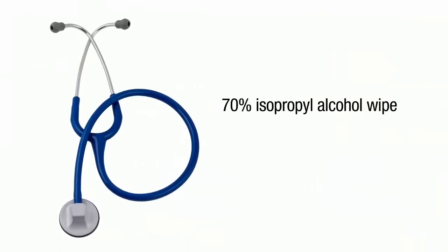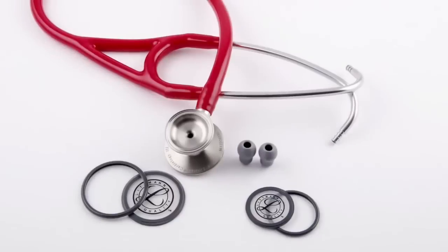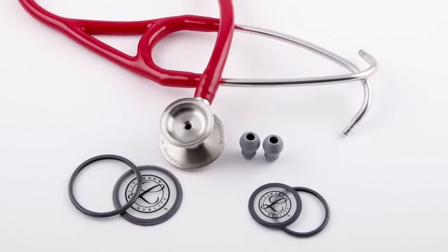Clean your stethoscope after each patient examination with a 70% isopropyl alcohol wipe or soapy water. For a more thorough cleaning, you can remove the rim, diaphragm, and ear tips.